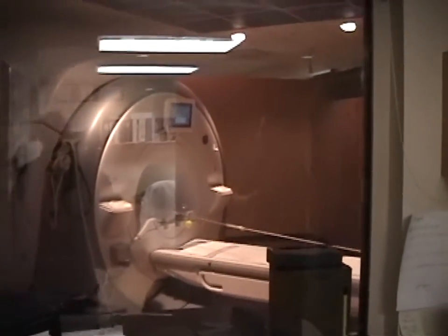So what is it that you're going to be able to do with the 3T that you weren't able to before? We see much more detail — we're double the signal, running 3 Tesla versus 1.5. Although the stronger field means we have to turn certain patients away that have stents not cleared for 3T, we actually get great nerve detail and great musculoskeletal imaging. We're using the tagline: better images equal better decisions. If we get better images, the better they can treat the symptoms.